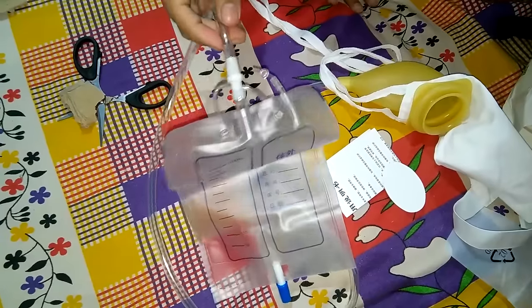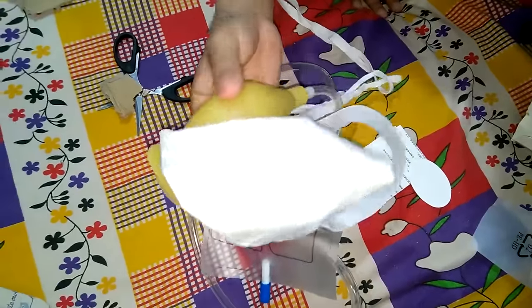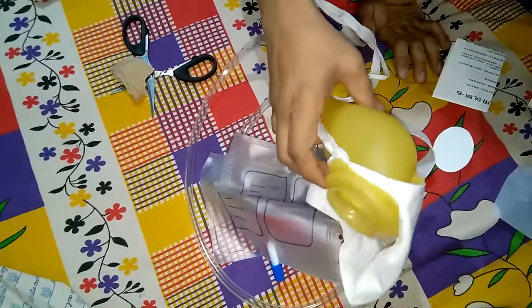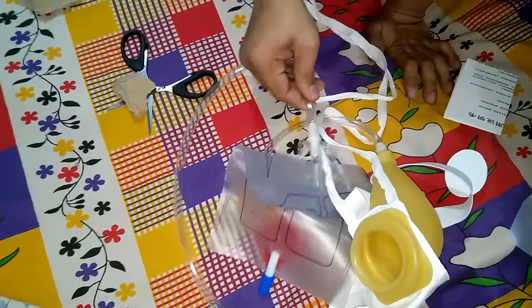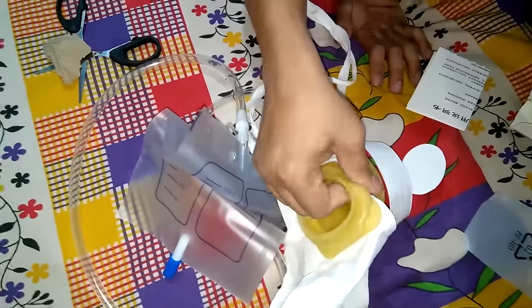From the bag you can discharge it in the urinal. So this was the quick unboxing and review of this product. I'm highly satisfied by the quality — this is a soft material product and it will not be tough on the person wearing it.